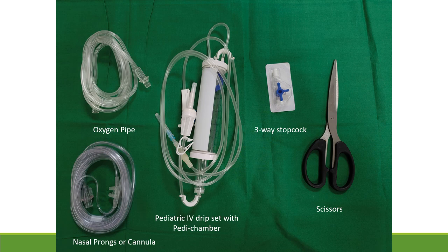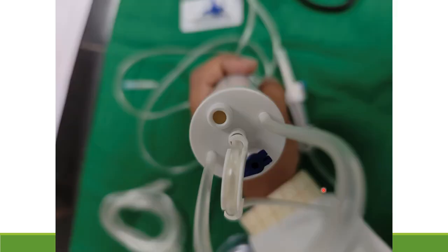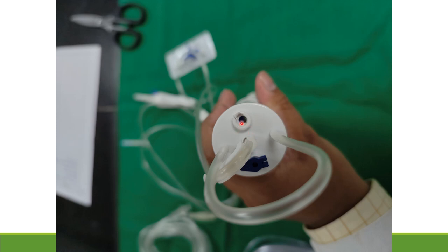First, let's look at how to prepare. At one end of the pedi chamber set you will find a rubber cap. With the help of scissors, you remove the rubber cap so it becomes open — there is now an opening there. Through this opening you can insert water up to some level.